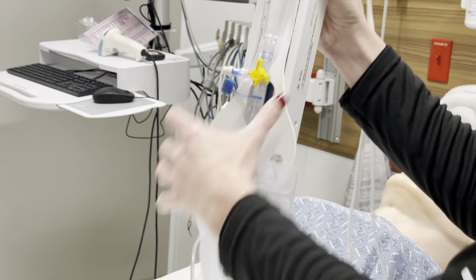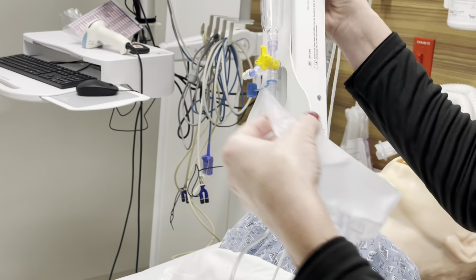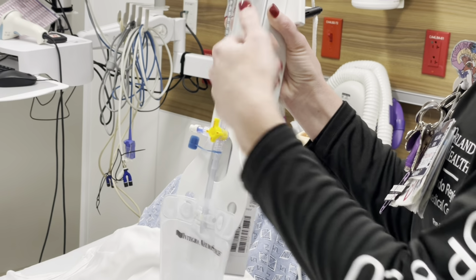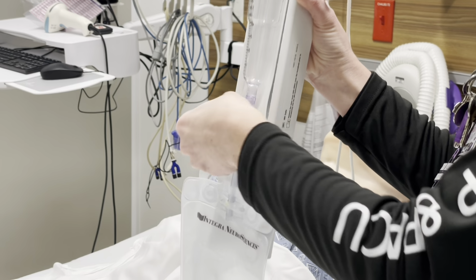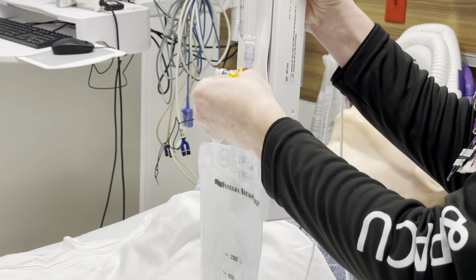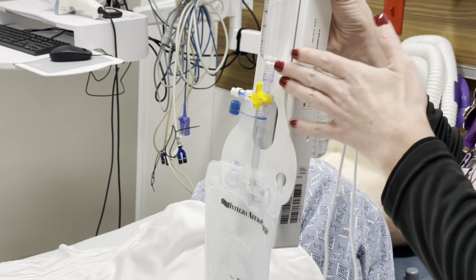You also want to check in your bag here, because when you go to prime your drain, it's going to be important. Sometimes they'll have fluid in this collection chamber. It could be CSF. It could be whatever they use to prime the tubing. It could be blood. So what you're going to do is empty it, make sure everything goes to the bag, close it back and start fresh. So now you know what you've done.